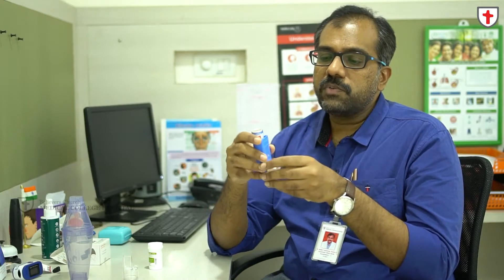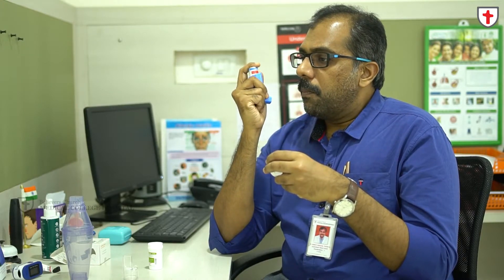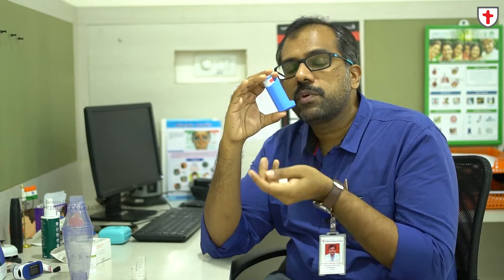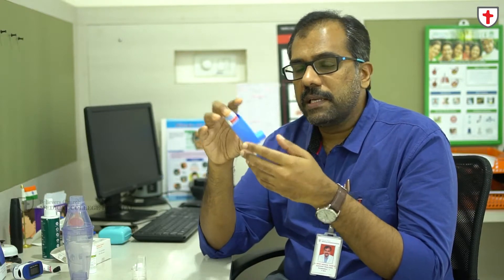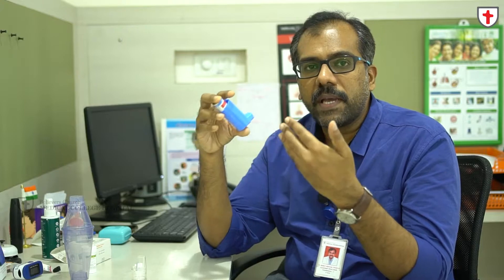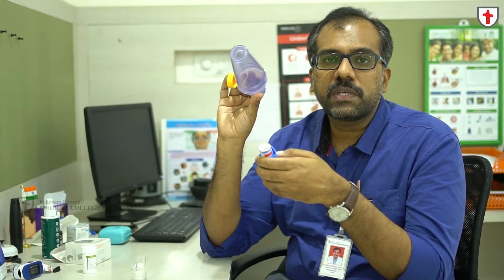Now, most of us take it by shaking the medicine and putting it in the mouth, then pressing the canister and inhaling. However, this is not the better way to take it without a spacer device. What we would suggest is that you want to have the maximum deposition of medicine going into your lungs, so the better option is to always use a spacer.